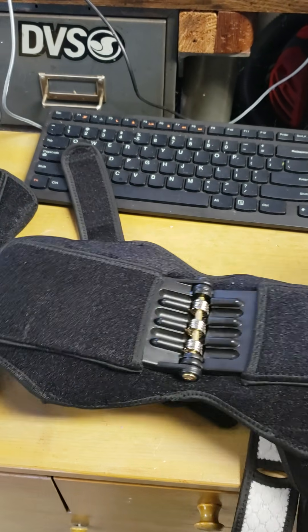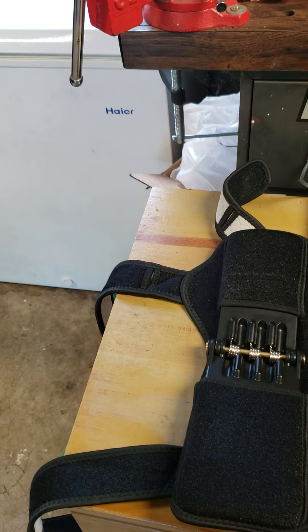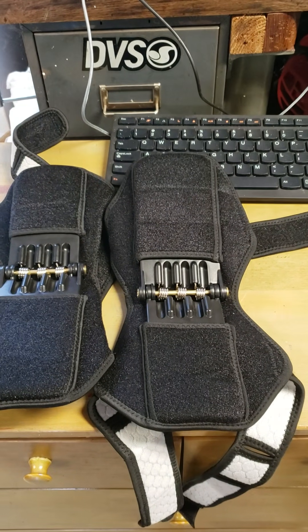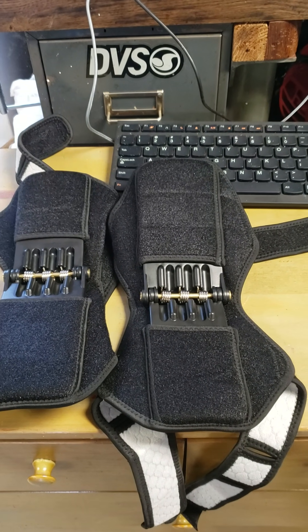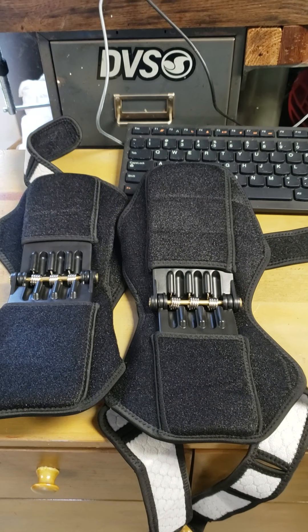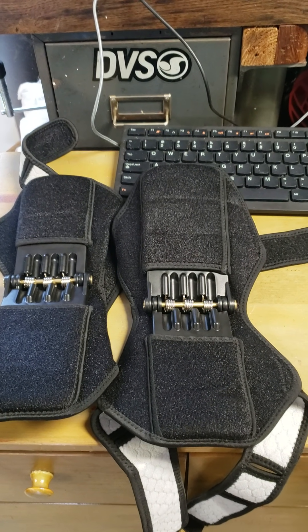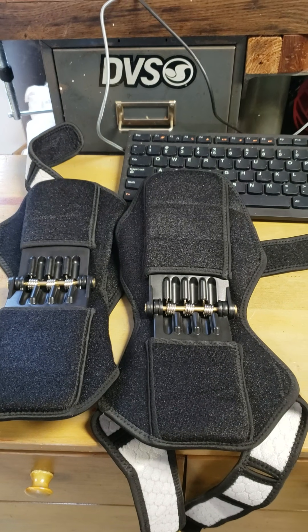But after putting these on myself, these aren't going to help her at all. And I'm not saying they're designed for somebody that's had a stroke, but in their infomercial, what they describe these are supposed to do for your legs is exactly perfect for someone that suffered a stroke and is having an issue with one of their legs.